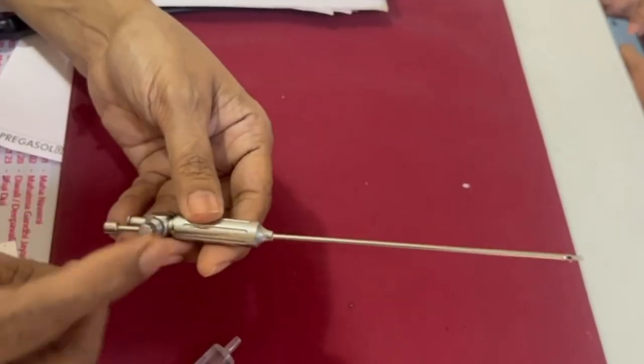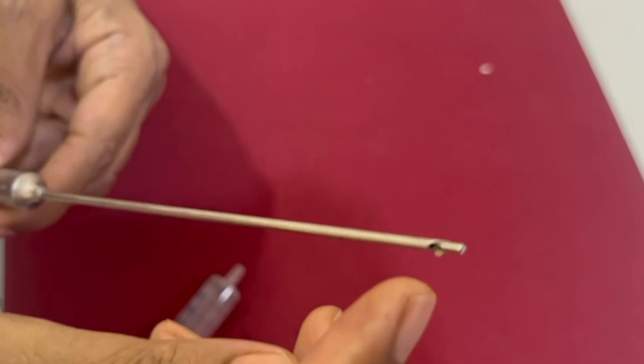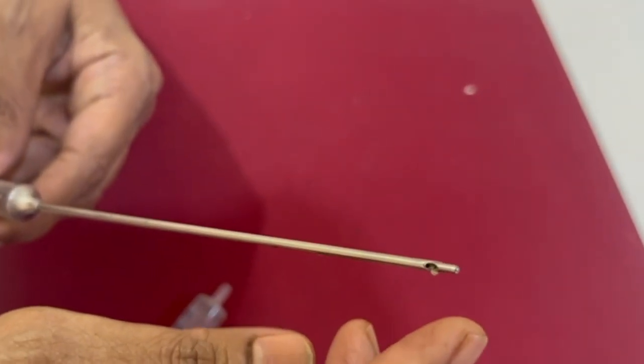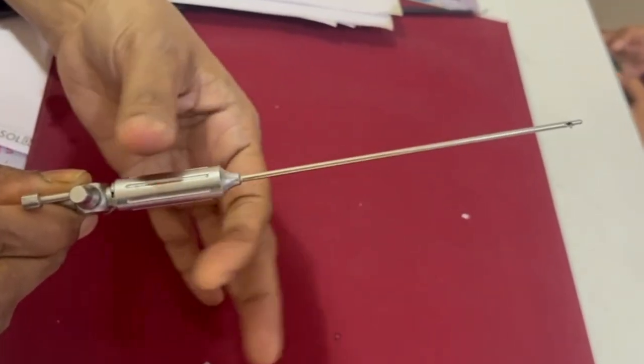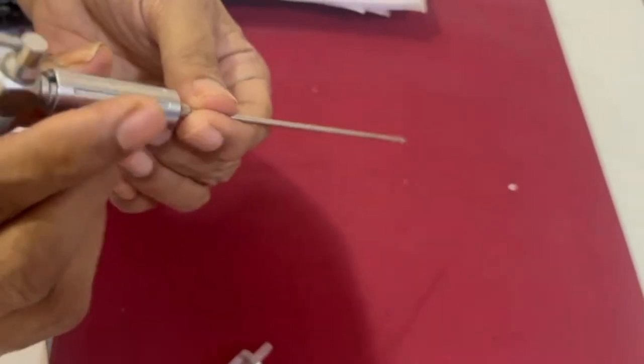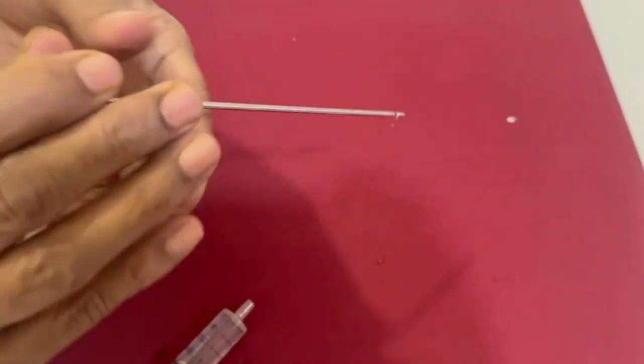Assemble the outer hollow one with a sharp edge and then the inner one which has a blunt end with the sub-terminal opening. We'll check for the spring action.